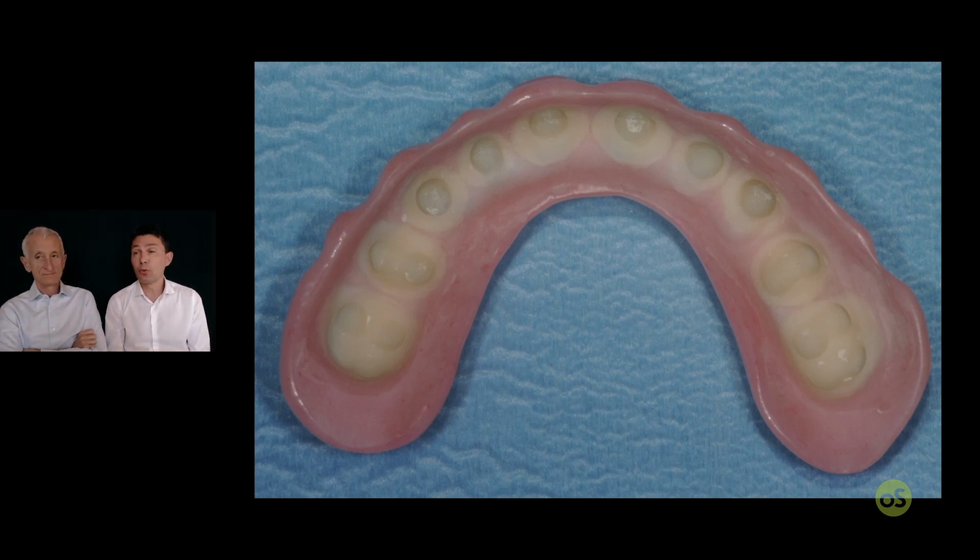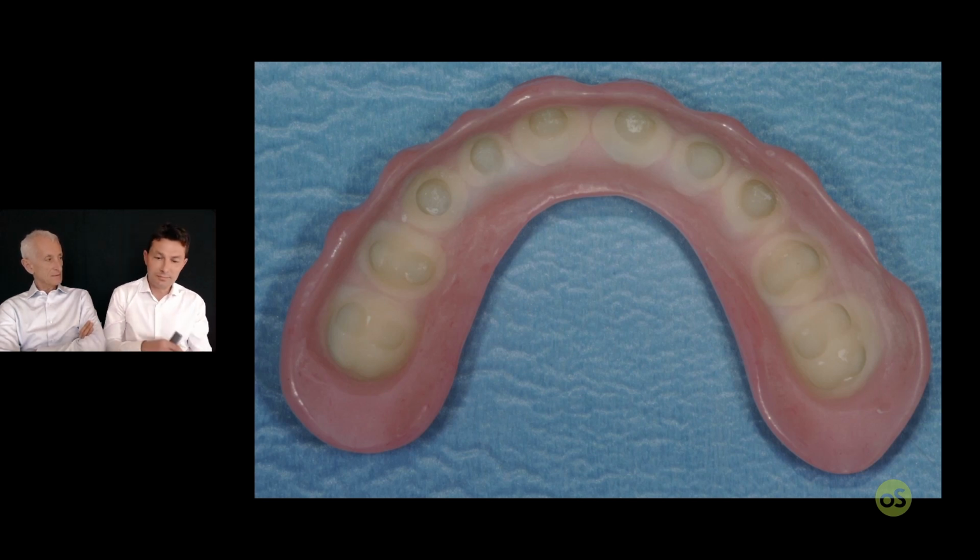For sure, when you use a full contour tooth, the full contour is more stable, because it has a lot of contact points in the plaster, and with a little drop of wax stays in position. When you select only veneer and close and bite with the upper or lower arch, sometimes it's possible to break the link with the wax. It is longer in this particular approach. It's more brittle during the drying. Yes. You have to be more careful. Okay, only this is the difference. But what is more beautiful?